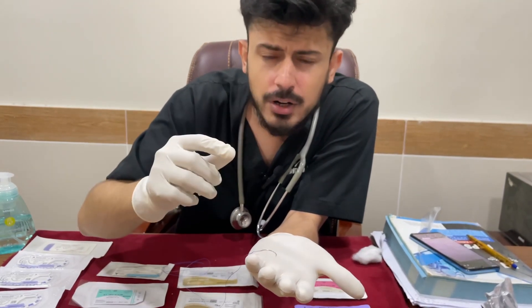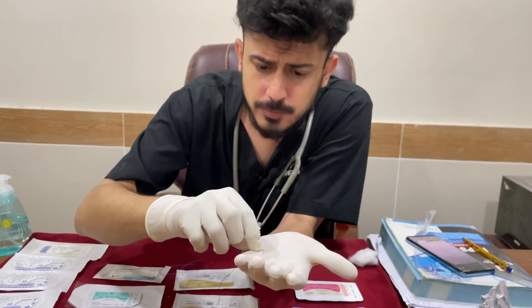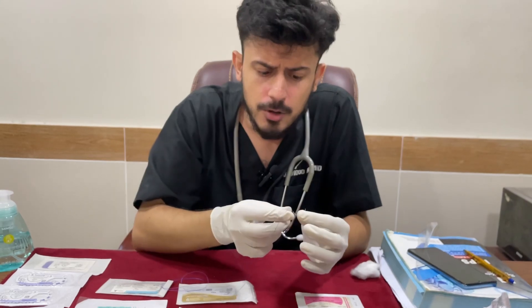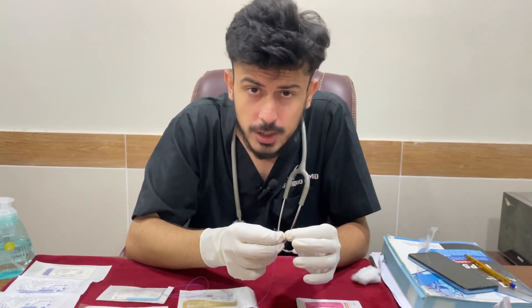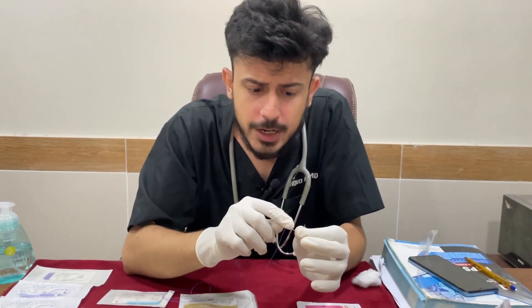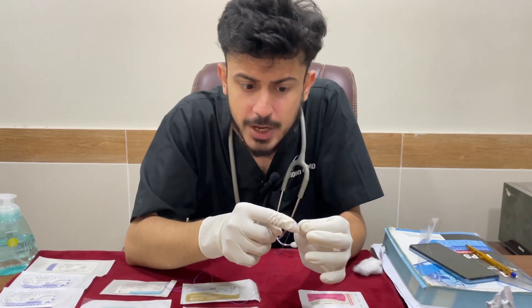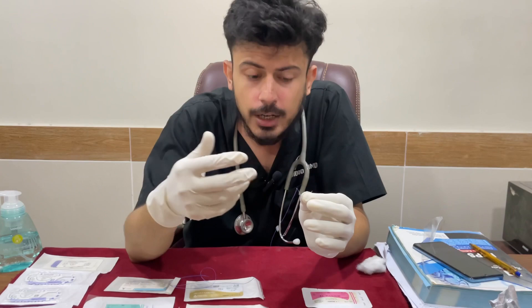Whenever we try to put a needle, we will always try to hold the suture needle using a suture holder or needle holder in such a way that it is away from the tip end by two-thirds, while it is away from the swage end by one-third. That is how you keep the suture needle.